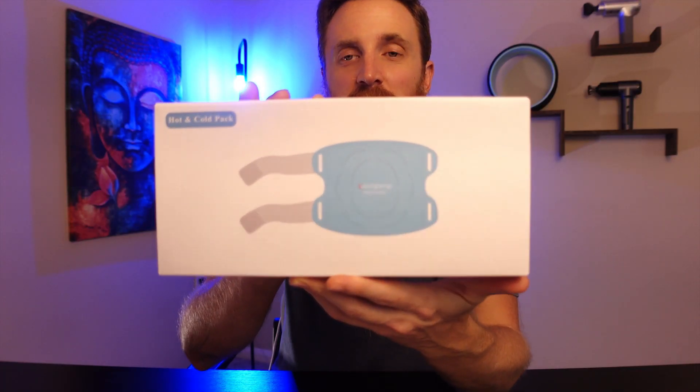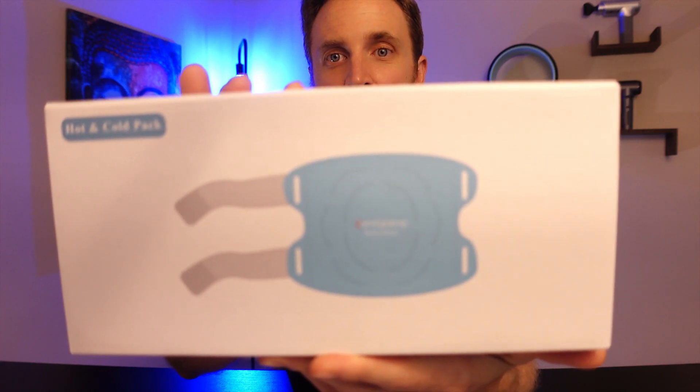In this video we're going to be taking a closer look at the ComfyTemp hot and cold pack. This hot and cold pack can be used as an ice pack as well as a hot compress. I really like that it has multiple uses — with the ice pack you can use it for different things like knee injuries or on different parts of your legs, and then for the hot compress you can use that to give you some relief and relax your muscles.